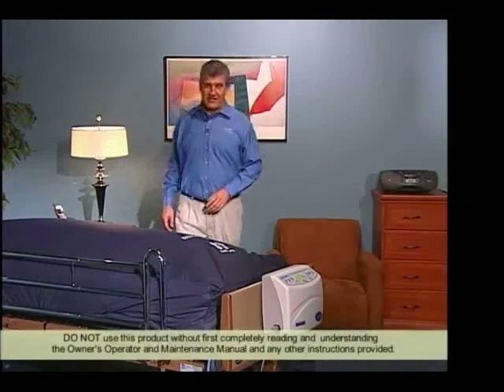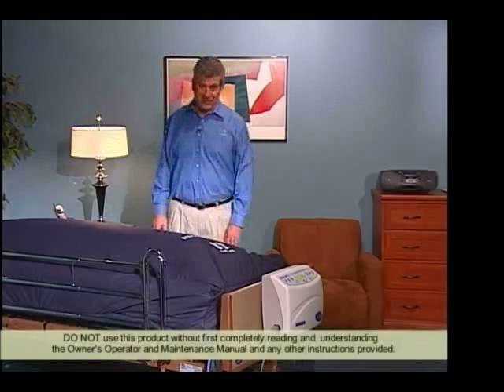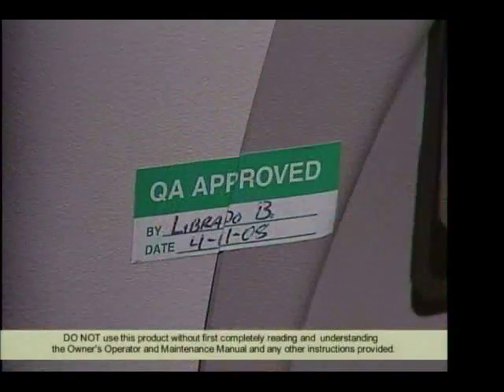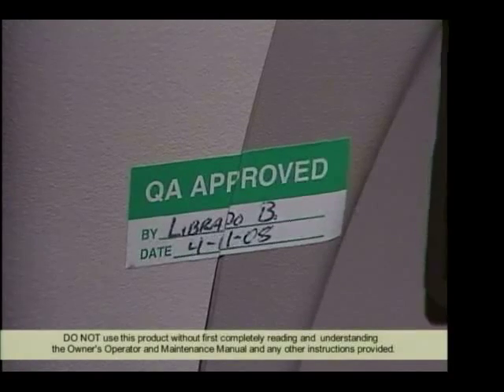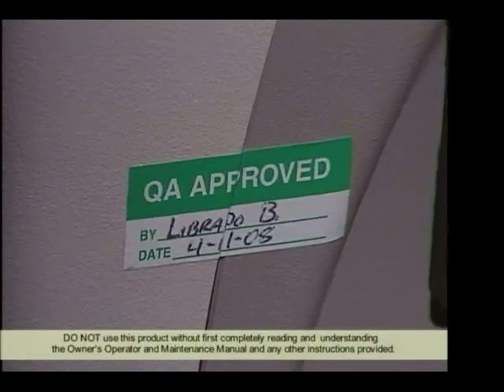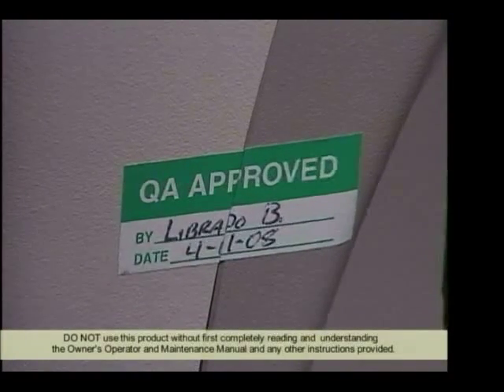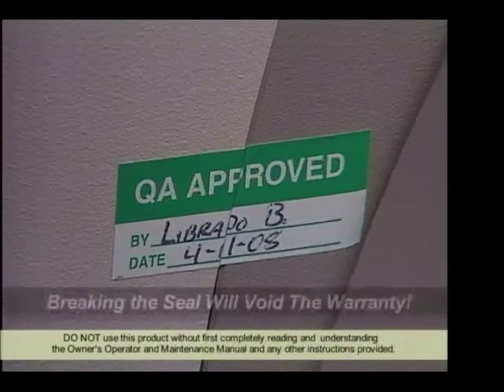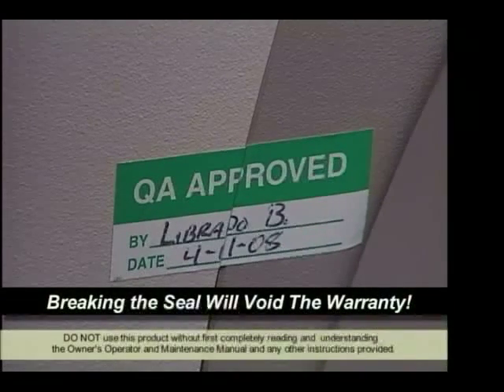As with all of our Micro-Air models, each of these is fully tested before they leave the factory. After being tested to assure that the unit is fully operational, a seal is placed over the seam on the control unit. You want to be careful that you don't open the back, because breaking the seal will void the warranty.